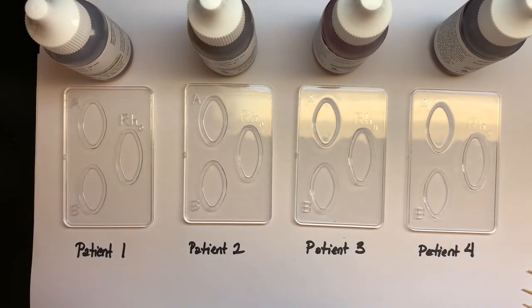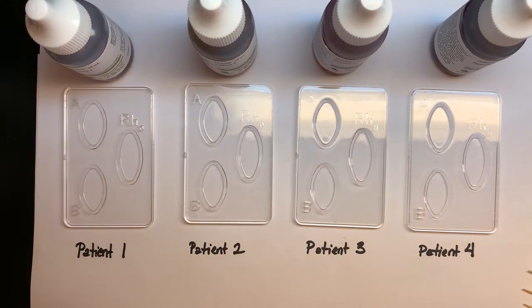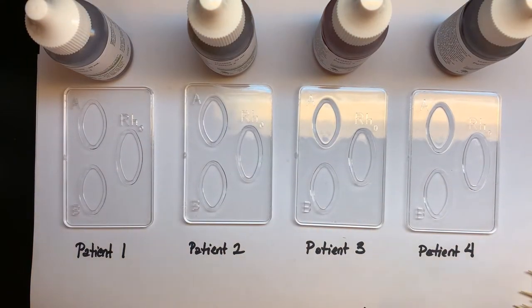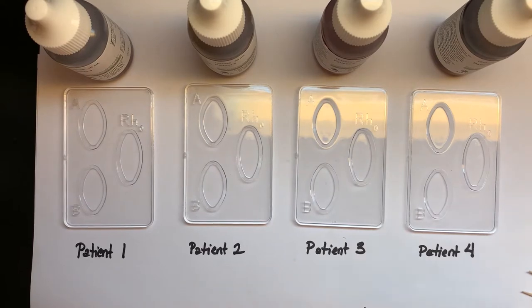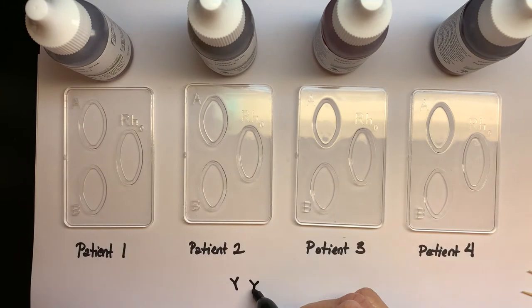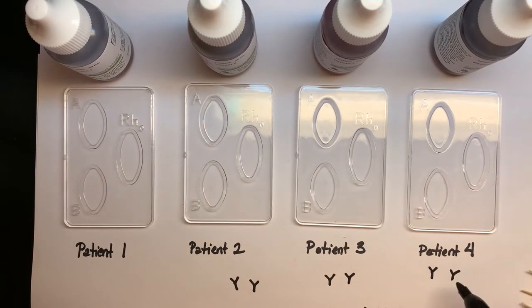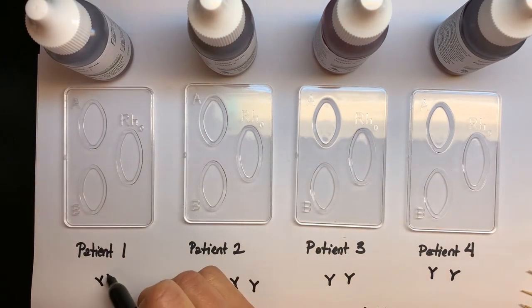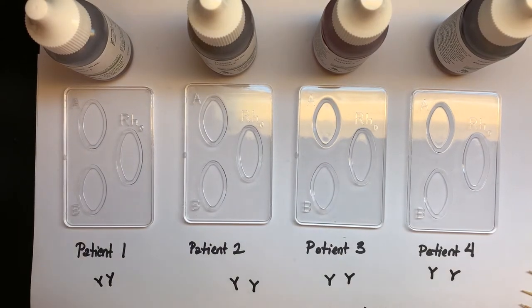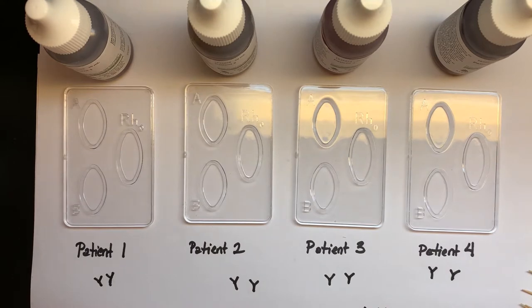To test these blood samples we're going to use antibodies. If you recall, antibodies are made by the immune system — they're made by little B cells. An antibody has this little Y figure to it, and I'm going to draw these to show you which antibodies we're putting into each of these patients' blood samples.